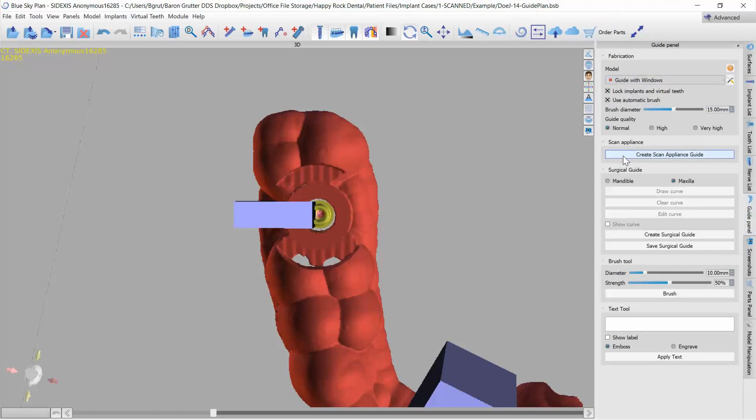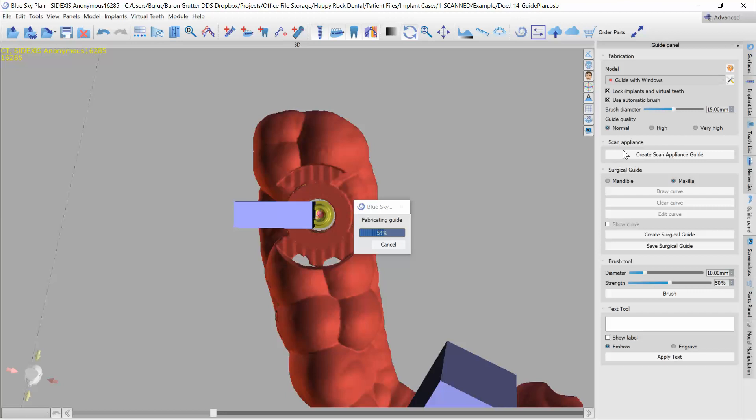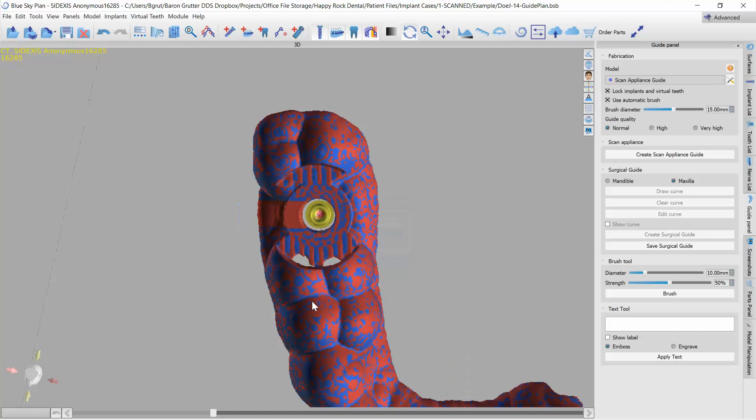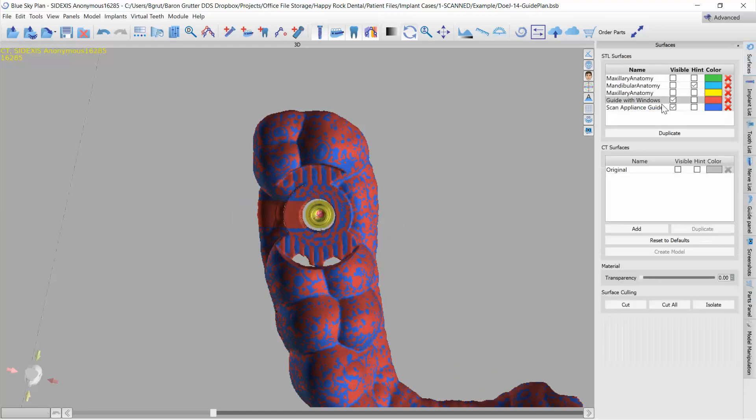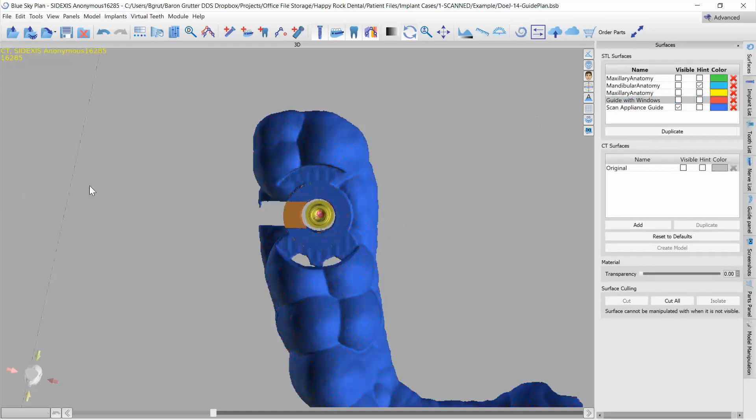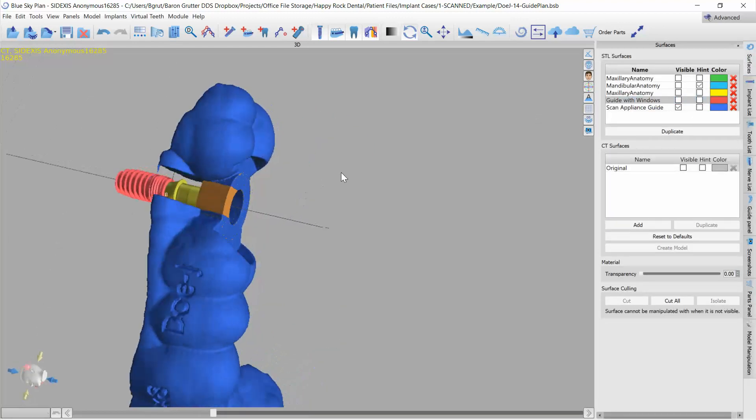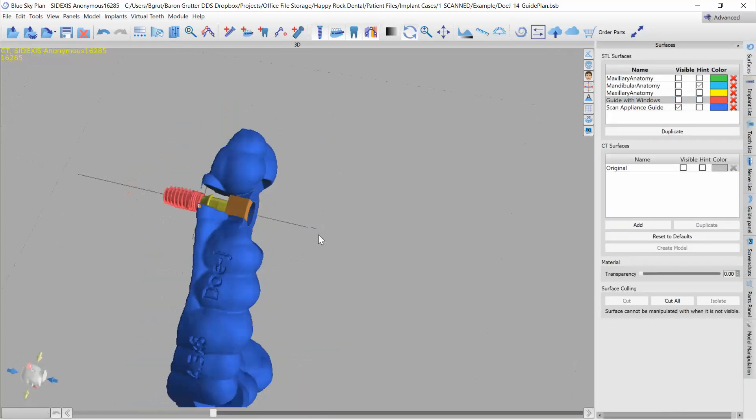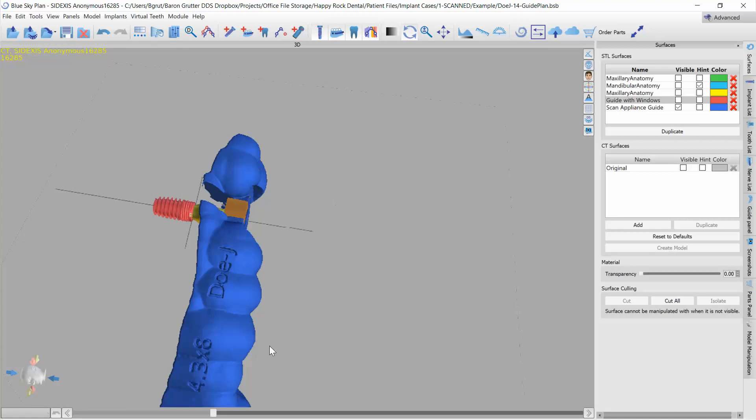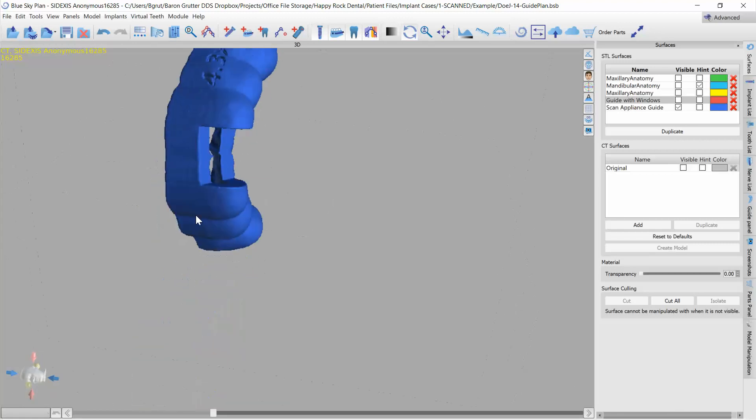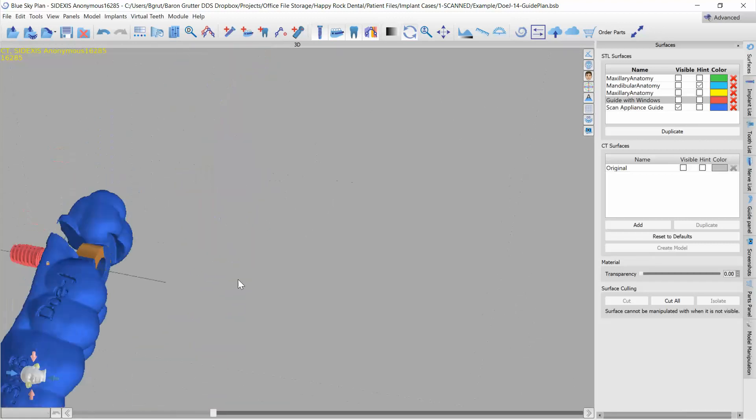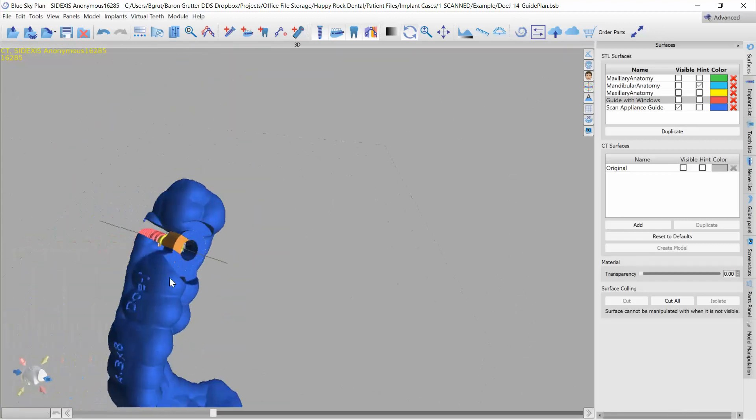Just click, make sure that I'm on the... let's actually one more thing to note here is that at this point you can do your guide creation like normal, making sure the models on and whatnot, or you can just come over here to guide panel, click on the previous guide, the red model, and just click create scan appliance guide. Now I could have turned the upper model back on and then hit create surgical guide again, the problem with doing that is if you've already labeled it, their labels are going to go away. If you don't show this window box, it's also going to go away. But by doing create scan appliance guide, everything should be kept, your labels, your previous window, everything is still there.